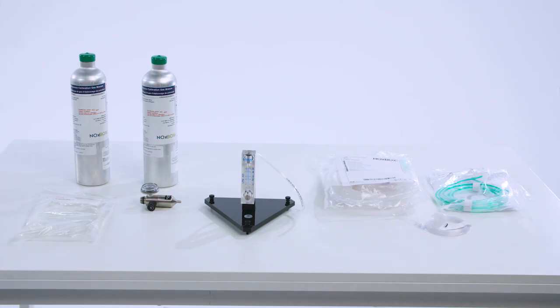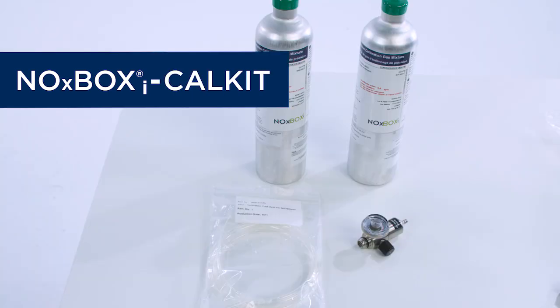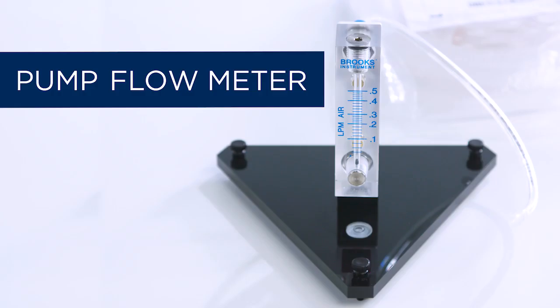the device. In order to perform the monthly calibration on the NOxBOXi system, you will need these items: a supply of 100% oxygen from either a wall source or a cylinder with a 10 liters per minute flow setting, a NOxBOXi test kit, including the NOx flow, sample line, and hydrophobic filter, a NOxBOXi cal kit which contains the calibration gases of 25 parts per million nitric oxide and 10 parts per million nitrogen dioxide, plus a NoxyCal stainless steel regulator, and a pump calibration flow meter.